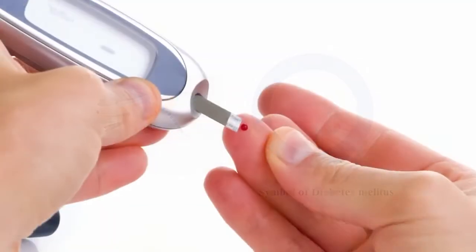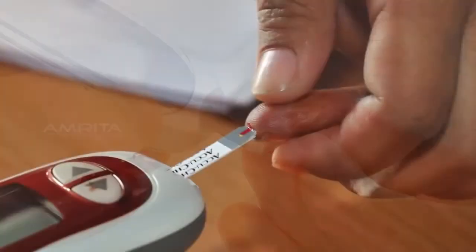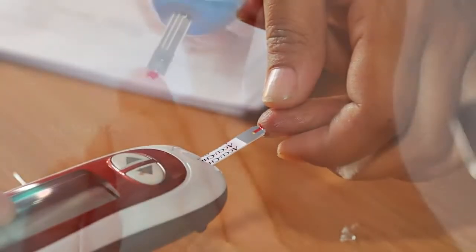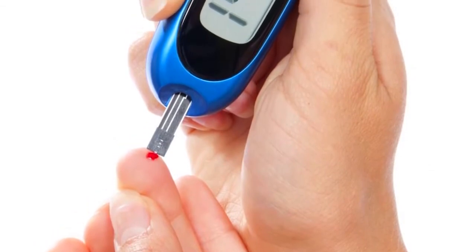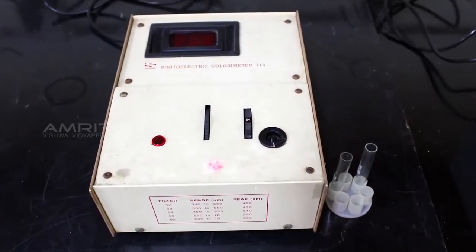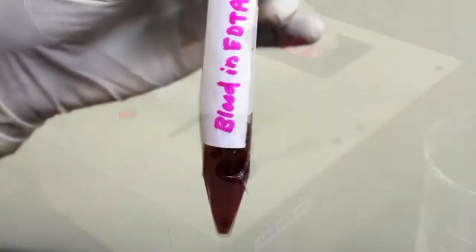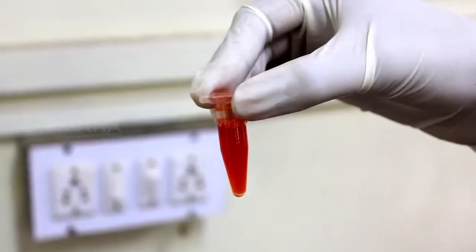So a simple, rapid and economical method of determining the blood sugar level is obvious, especially in the management of diabetes mellitus. The colorimetric method combined with an enzymatic reaction is most widely used for the determination of glucose in human serum.